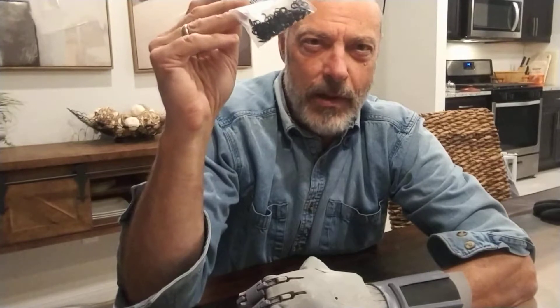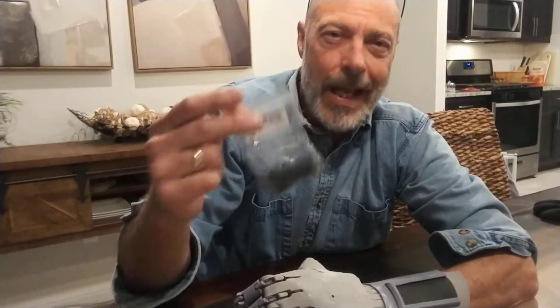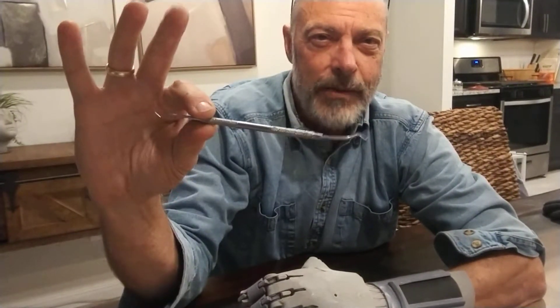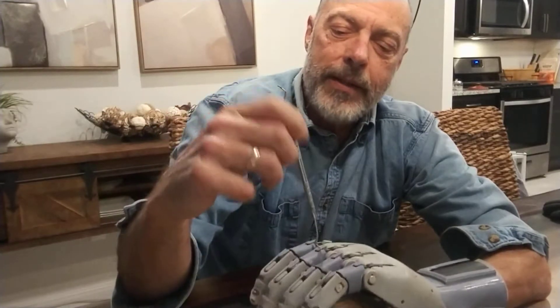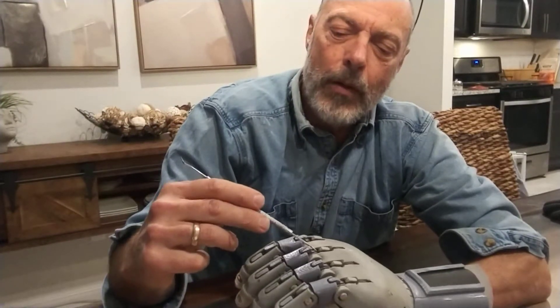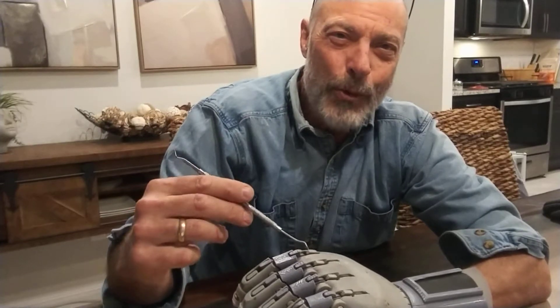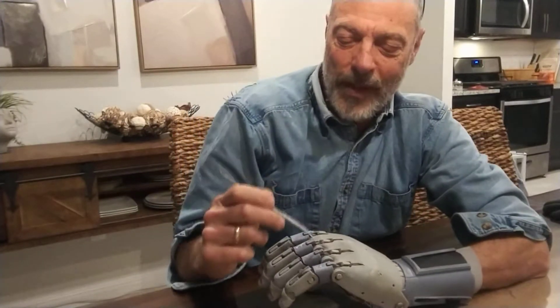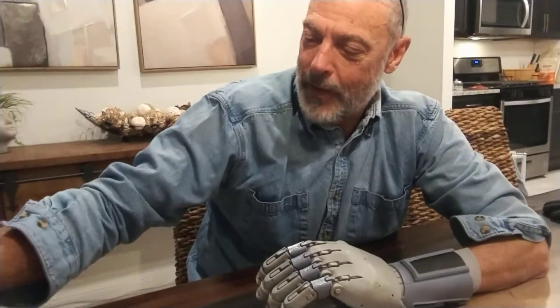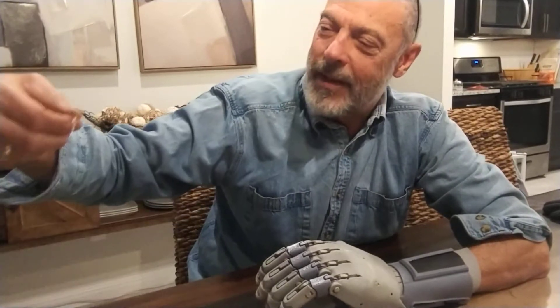Use these keyboard o-rings instead of dental bands and they'll last much longer, so users won't have to replace them as often. Speaking of replacing, a great tool is the dental pick, which I found is great to be able to pop the old bands out if you're doing a group change. Use it to put the new ones in and it makes life a whole lot easier.